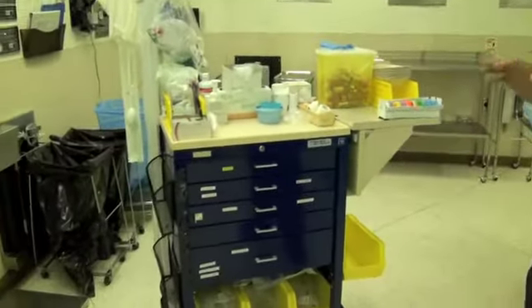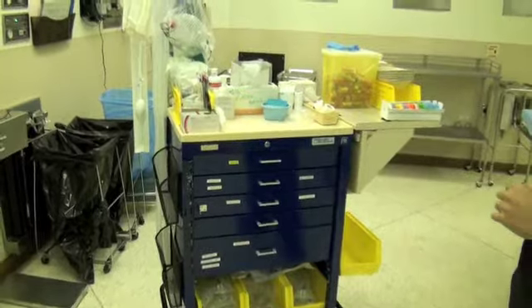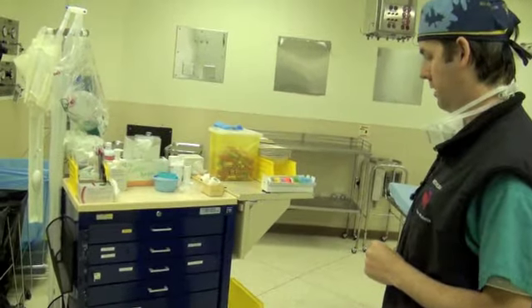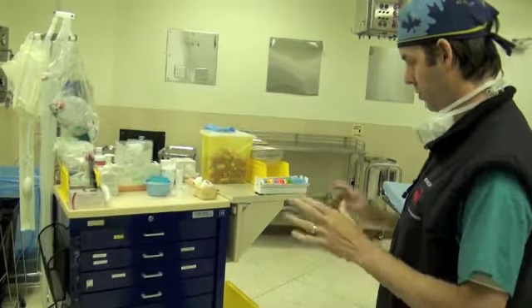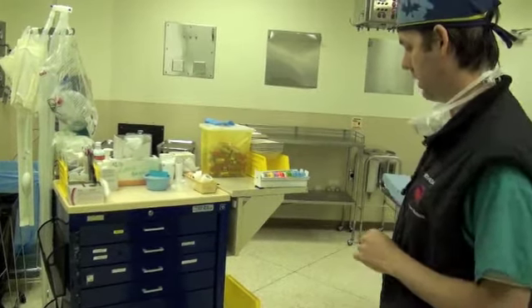I thought what we do is we'll go over the anesthetic cart. This is always an area where when a student walks in and does anesthesia, they're not that familiar with how a cart is set up. And if you were a little bit more familiar with it, you'd be able to at least know what the staff person that you're with is talking about and where to find everything.